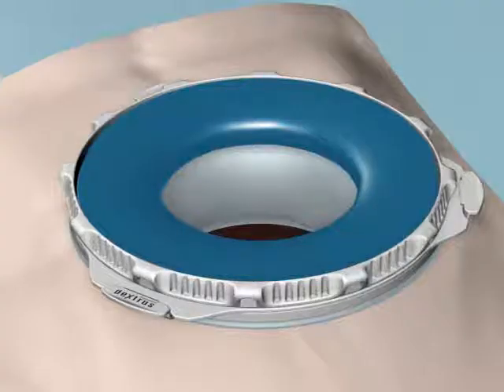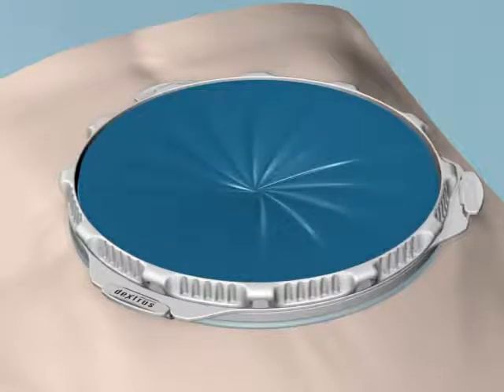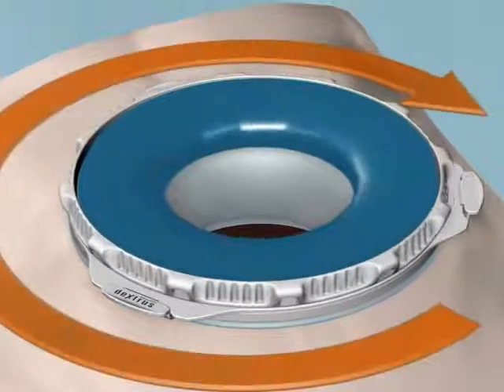The iris-valve seal can now be opened or closed. To close the iris-valve seal, rotate it.